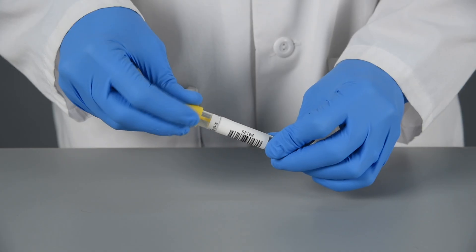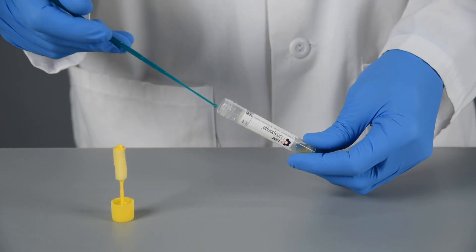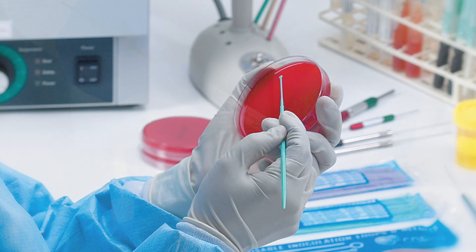Follow laboratory internal standard operating procedures for inoculating the urine sample from the tube onto culture media, or refer to published microbiology manuals and guidelines.